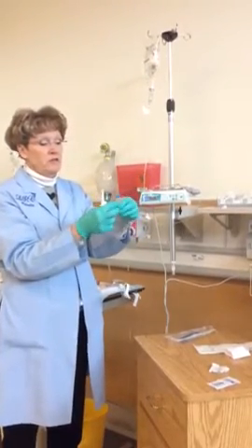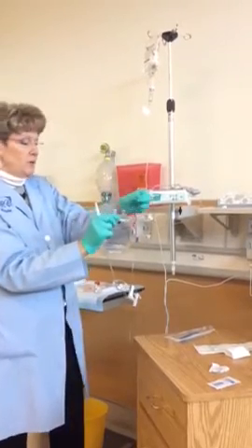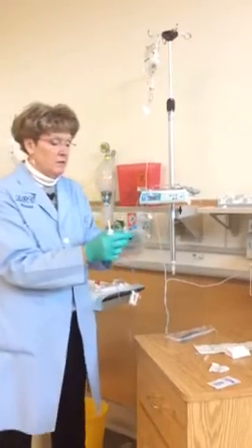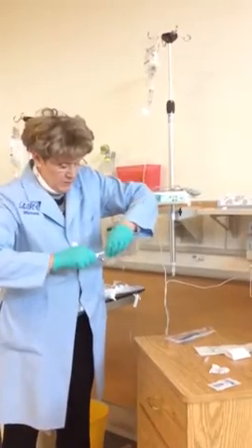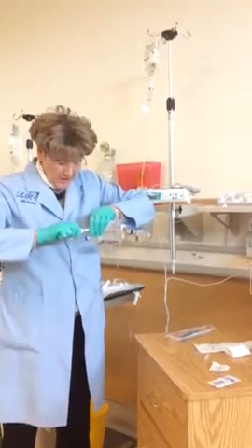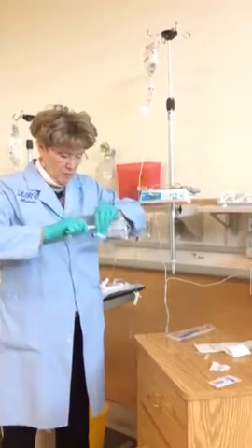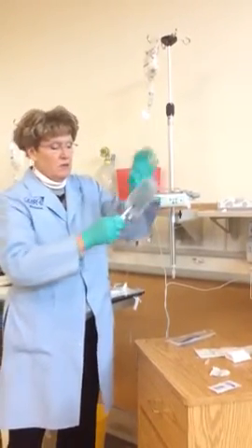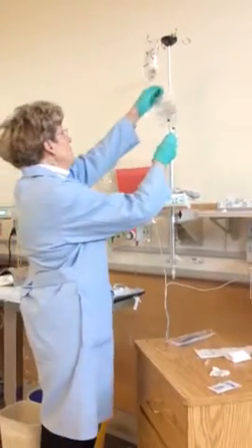So same thing, injection, spike, it's got a foil over it. I need to do ladies first. Pull the foil off, keeping that area sterile. Pull your spike off second. I'm going to flip my little tube up here and spike the bag. I can do it in kind of a horizontal, but notice that I don't have it up against my uniform. There's a real tendency for you guys to want to get it up here where you got stronger muscles. You need to hold it away from your body. Run it up to the groove, drop, make sure none of my little bubbles went in.